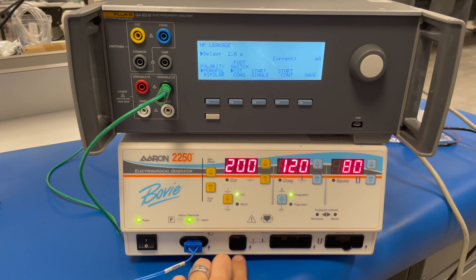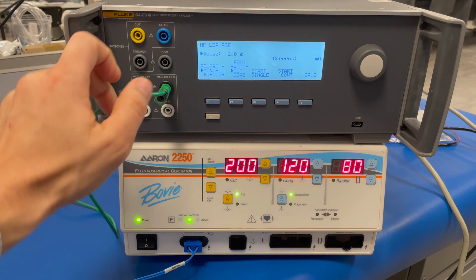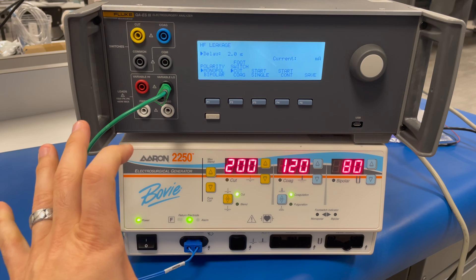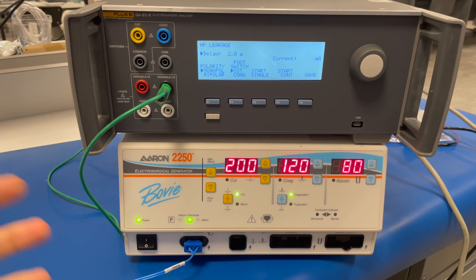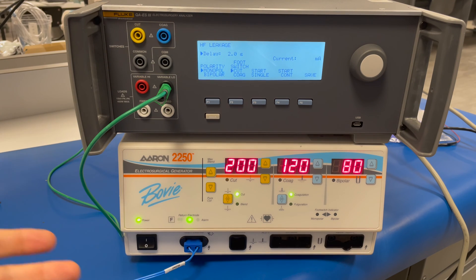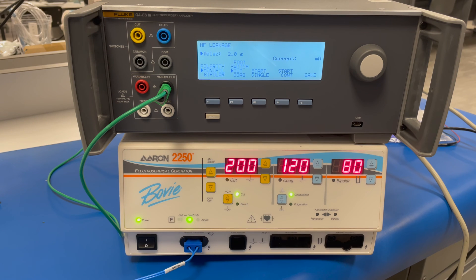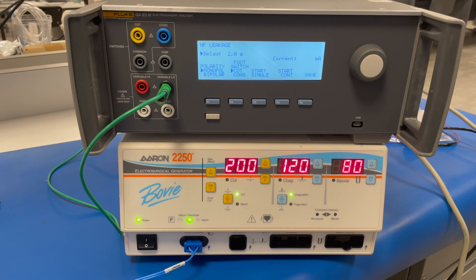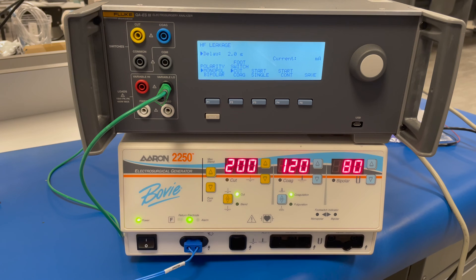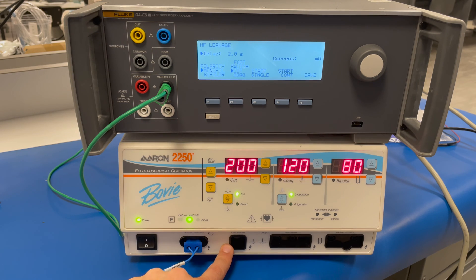Last but not least, you're going to have to connect the foot pedal output to the variable high. You'd go ahead and test that at the max power settings.